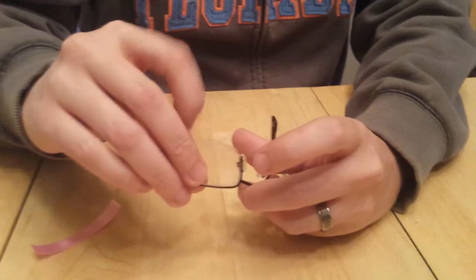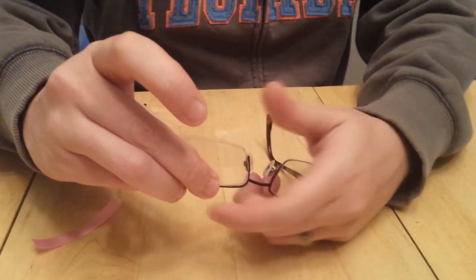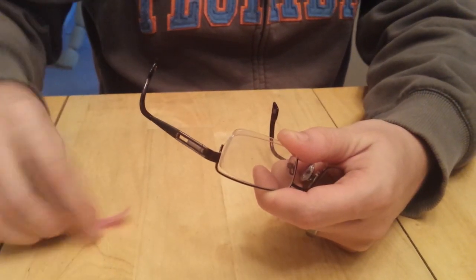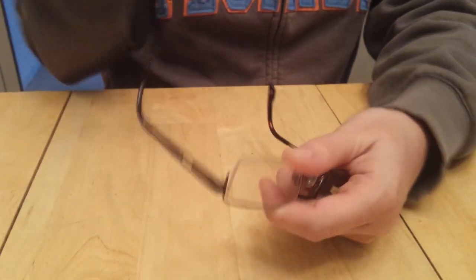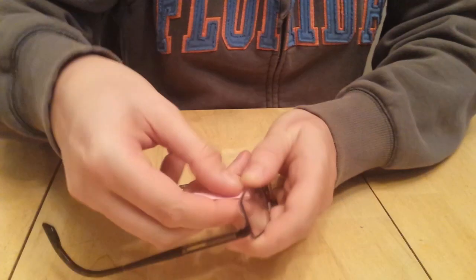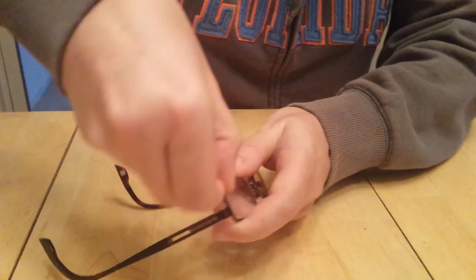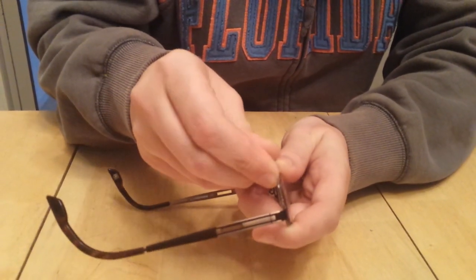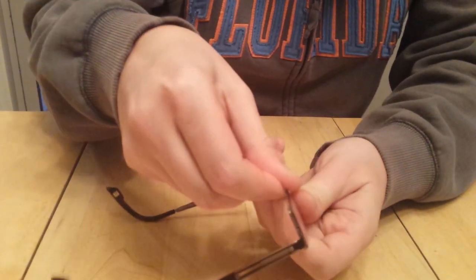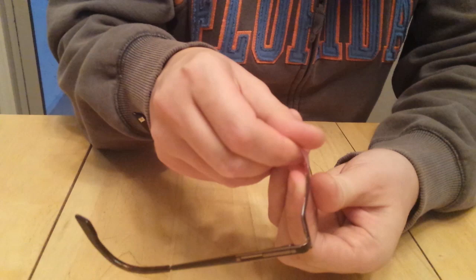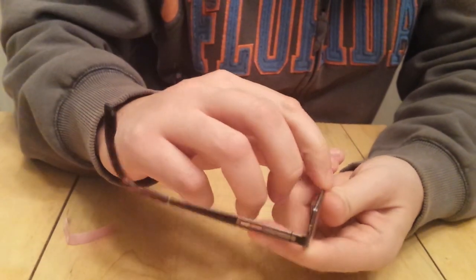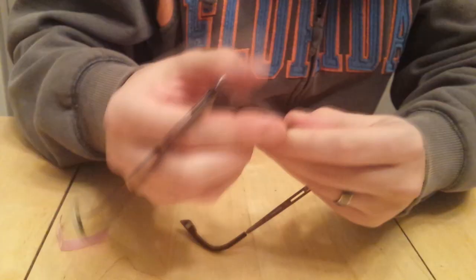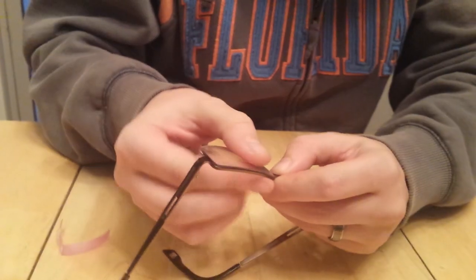Take the new lens and put it into place. Hold the top and then use the flexible ribbon to grab the filament. Use it to thread it into that groove on the lens. Sometimes you hear a nice little pop when it pops into place. Make sure the lens is in the groove all the way around. If it's in there pretty firm, it's not going to go anywhere.